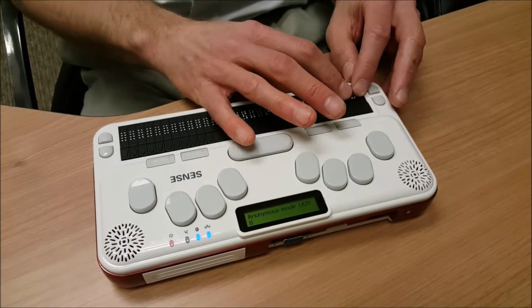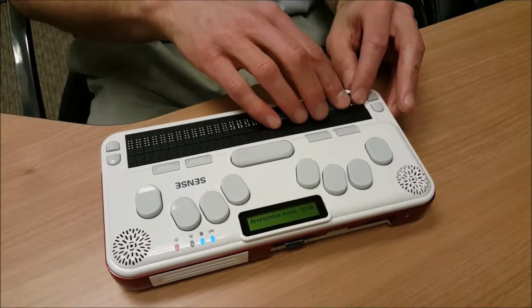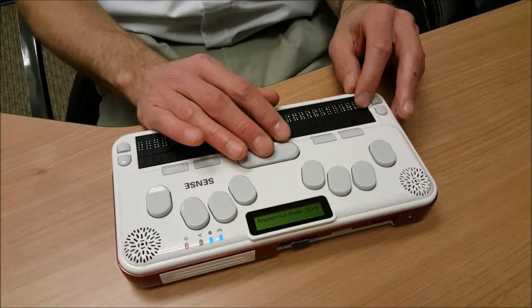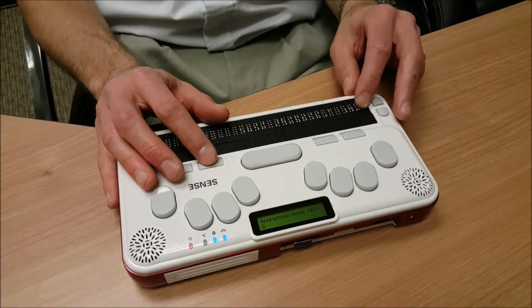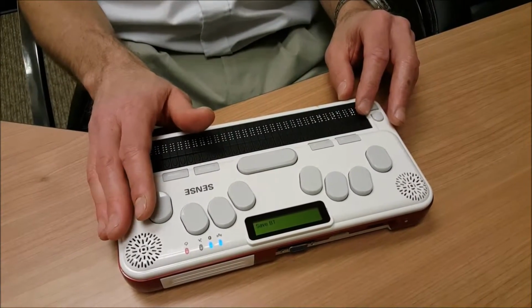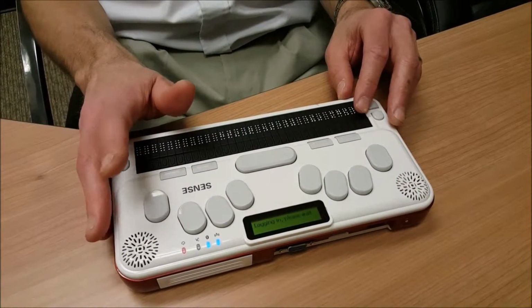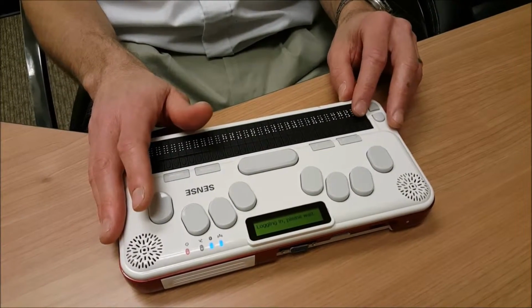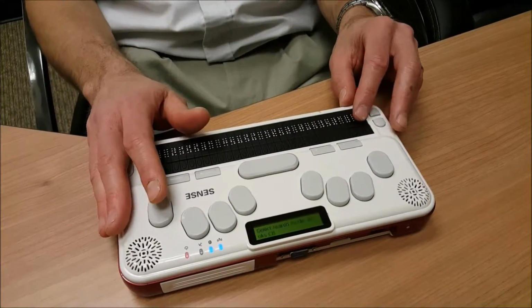On the Braille display, I would see UCHB for unchecked, Anonymous mode. Checkbox checked. or SCHB for selected checkbox. I'm going to press the space bar again to uncheck this box. Anonymous mode. Checkbox unchecked. And I'm going to press my Function key 3 or Tab key again. Save. Button. And by pressing Enter on Save, I will log into Bookshare and my user ID and password will be saved. Logging in. Please wait. Option saved.